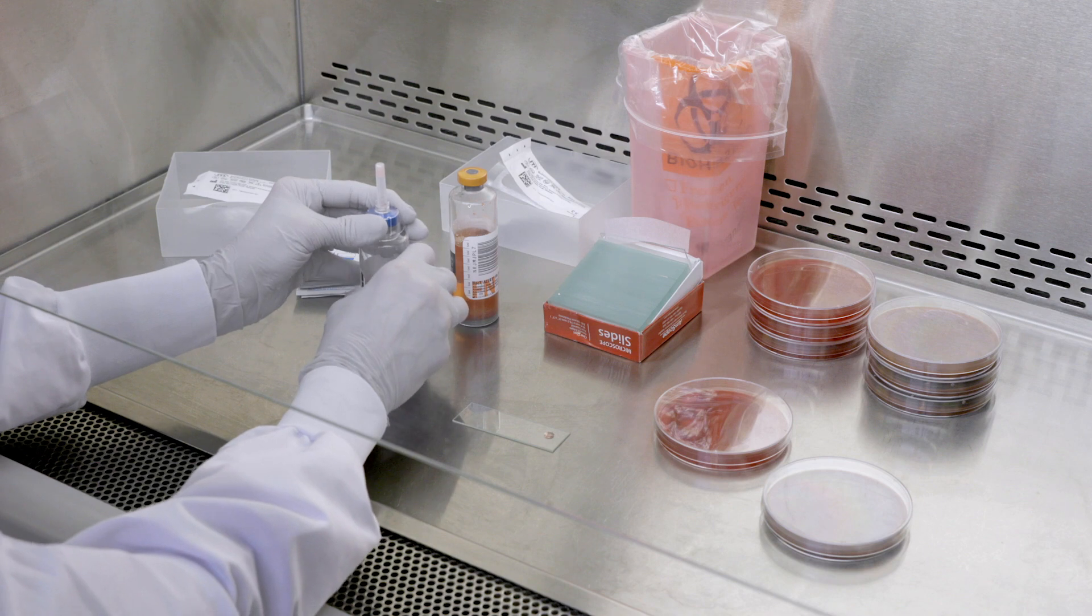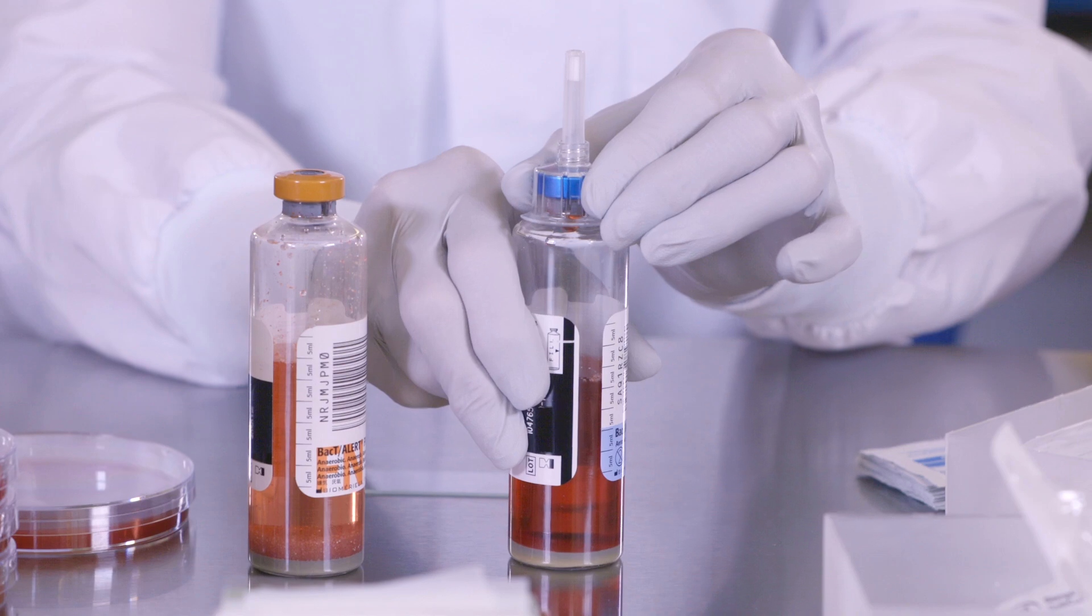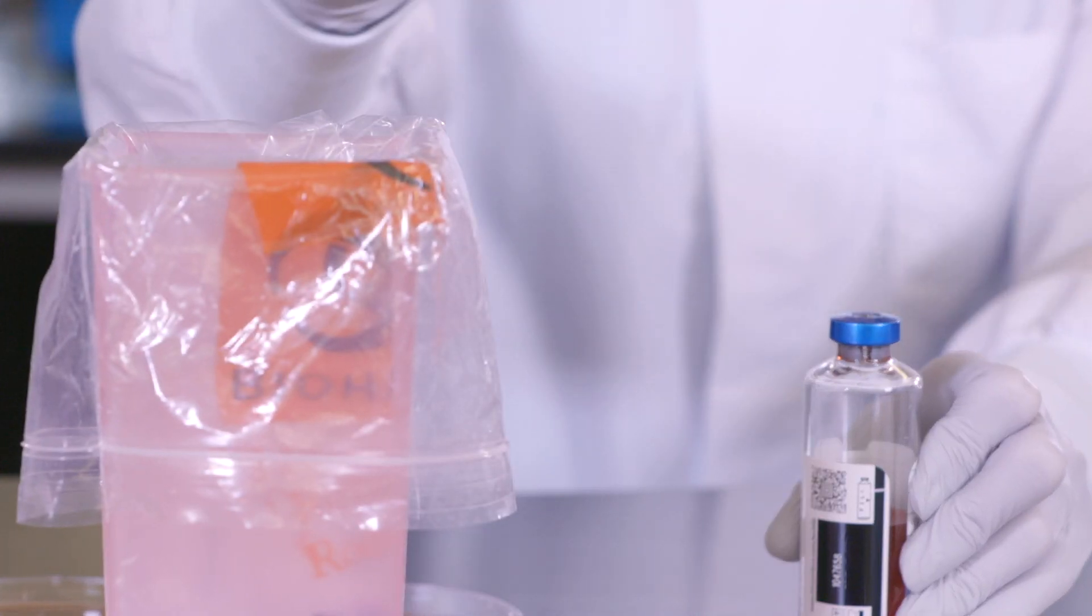Now, you are ready to remove SCU-2 from the bottle. Hold the bottle with one hand and with the other hand, lift SCU-2 straight up from the bottle septum. Dispose of SCU-2 according to your facility procedure.